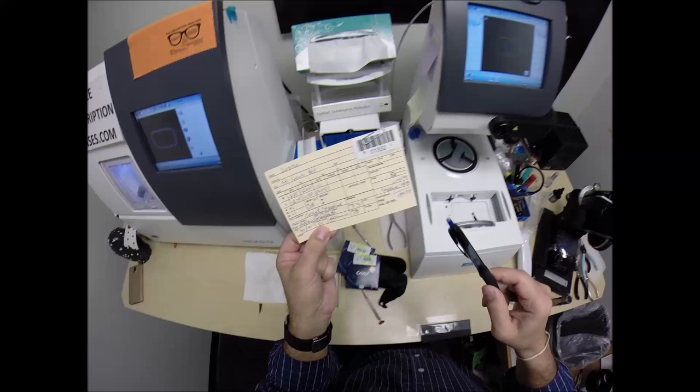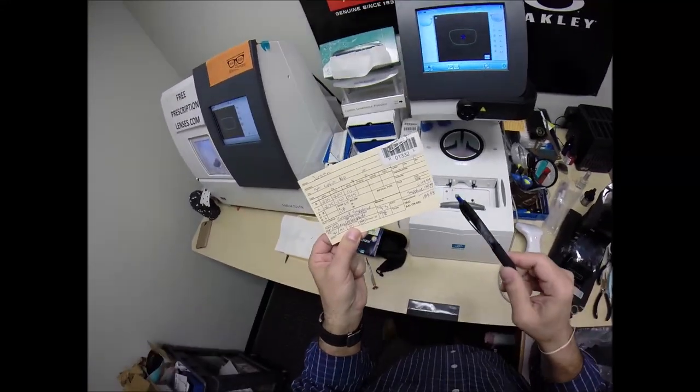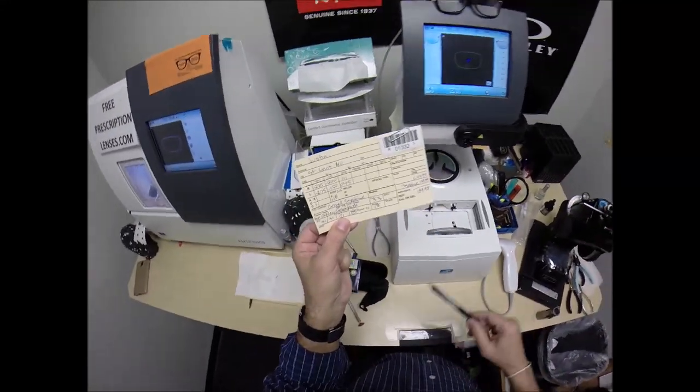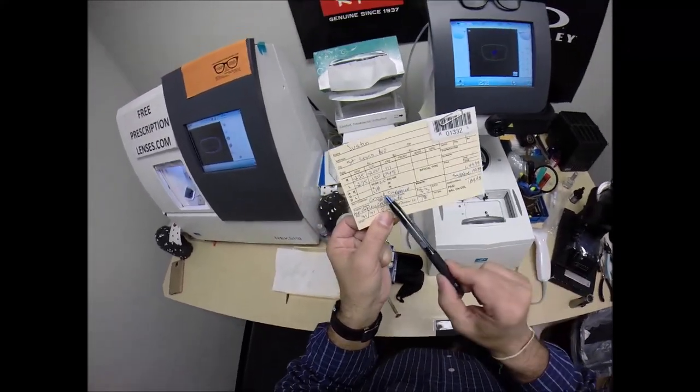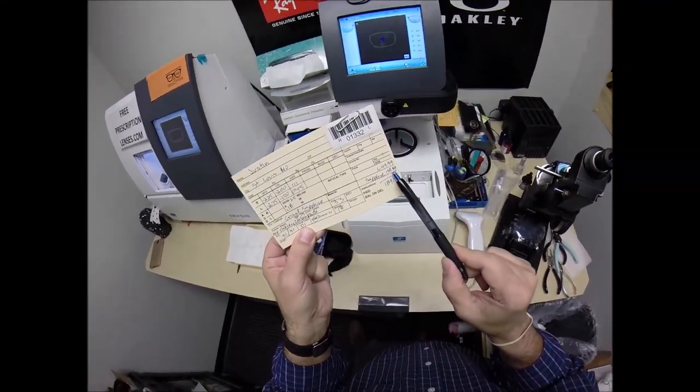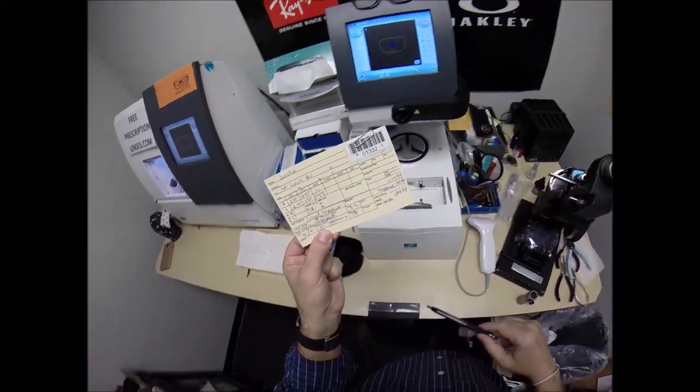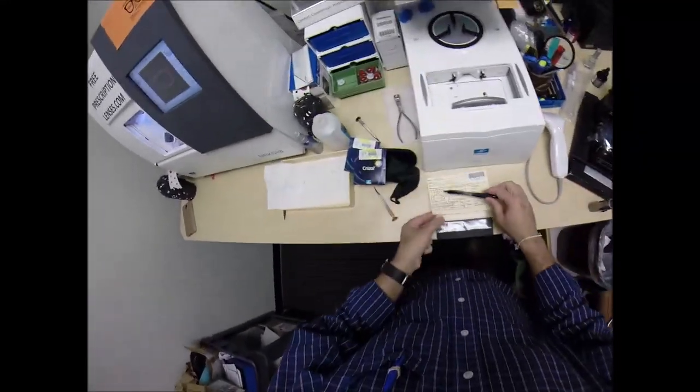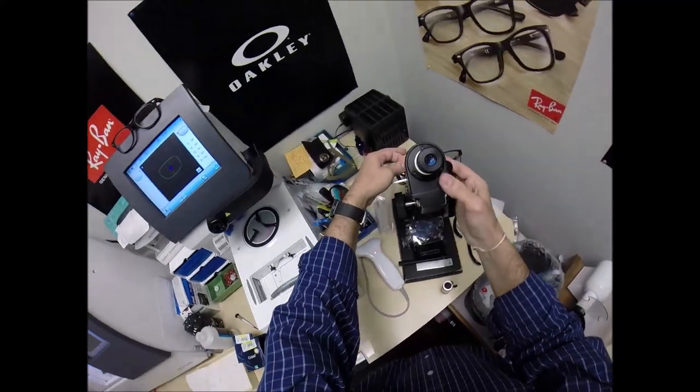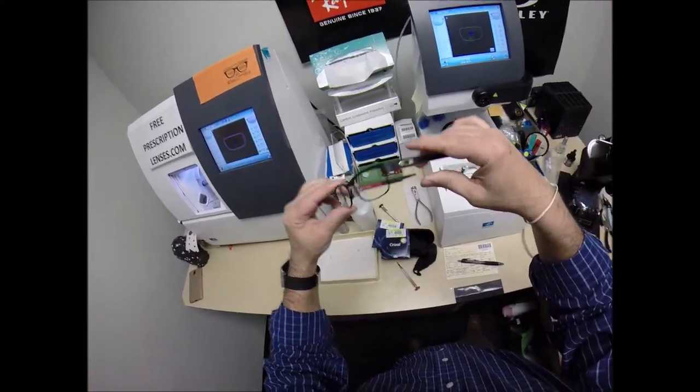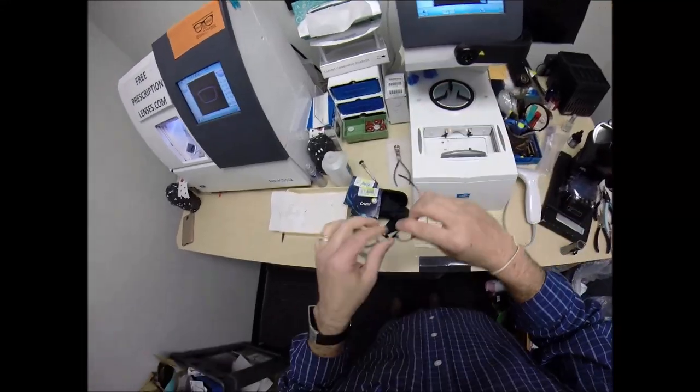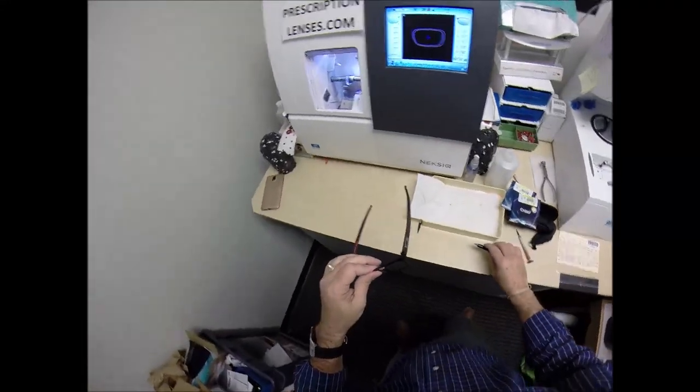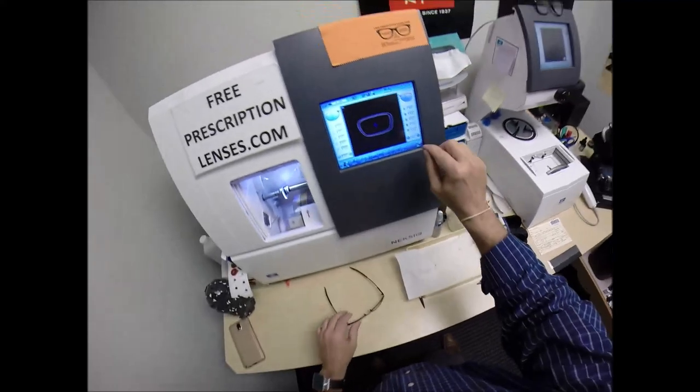Now, your left eye needs 11 steps of far-sighted correction, but only six steps of astigmatism correction. So, we're going to end up at three and 50. You're going to be four and a quarter also. How about that? So, you're going to end up with the same total power. We're just going to get there differently. We're going to turn that fine-tuned knob to 45. So, these first two numbers are real values to be concerned with. This last number could be anywhere from zero to 180. It just tells us where to set that fine-tuned knob to make everything nice and crisp. Now, normally, this frame sells for about... I can't remember how much it sells for. But, you didn't buy the frame for me. So, that's why I got to charge you $49.99 for your lenses. The Crizal Sapphire 360 is $139.99 for a total of $189.98.